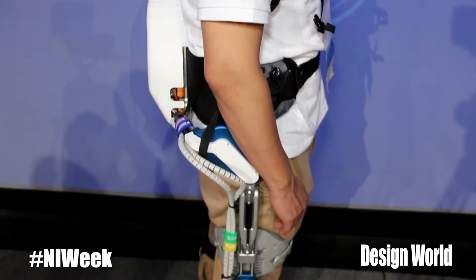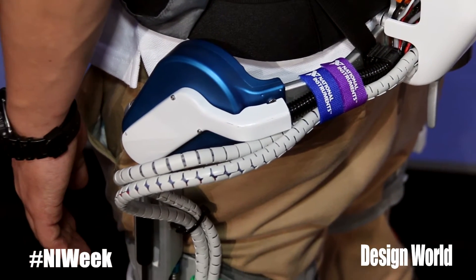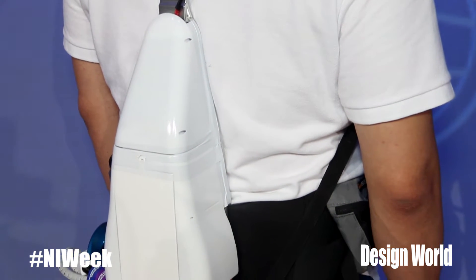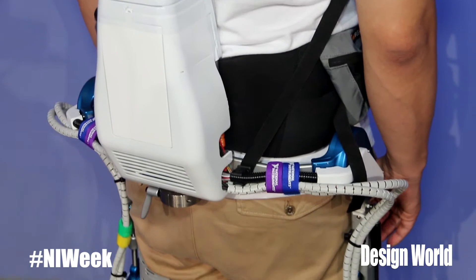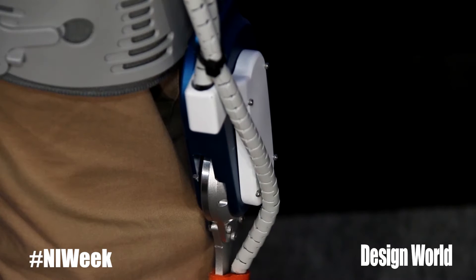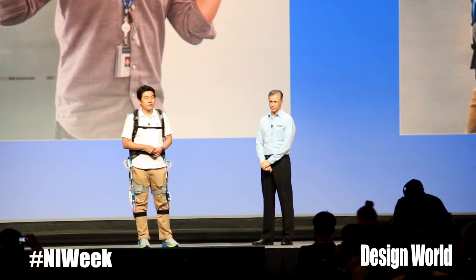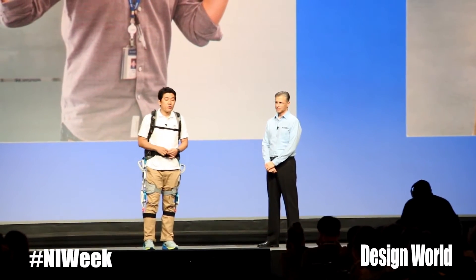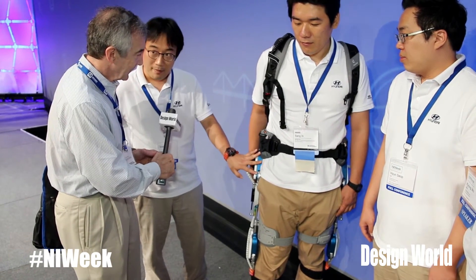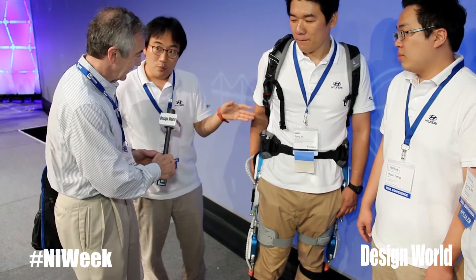This is one line-up among the exoskeletons we have. This exoskeleton has really unique actuators — it's actually the same structure applied to each actuator. This actuator has an electric motor and harmonic drive. Between the electric motor and harmonic drive, there is one rubber belt. So if the wearer wants to move, this moves the gear and then the rubber belt and electric motor. The robot recognizes the deformation of the rubber belt and can know how the wearer wants to move.